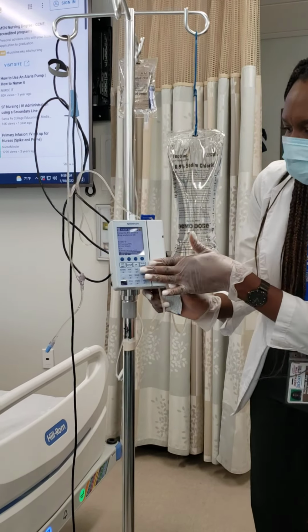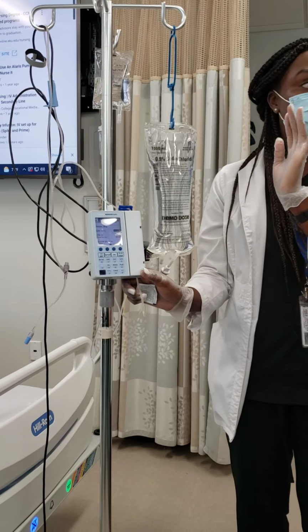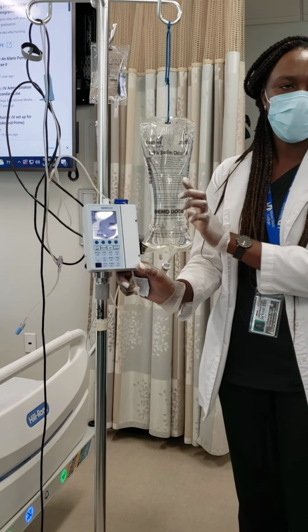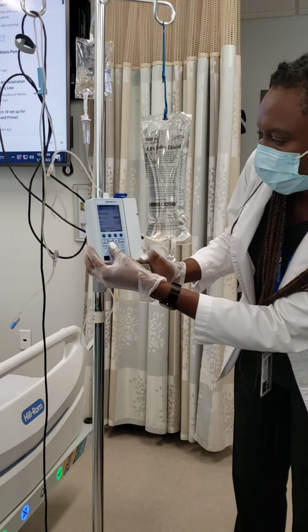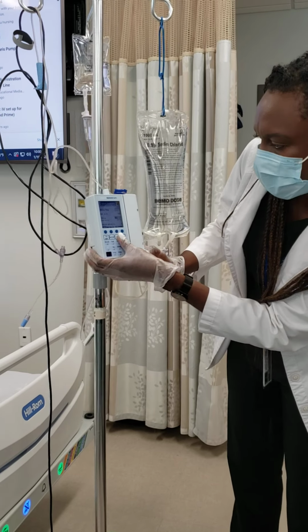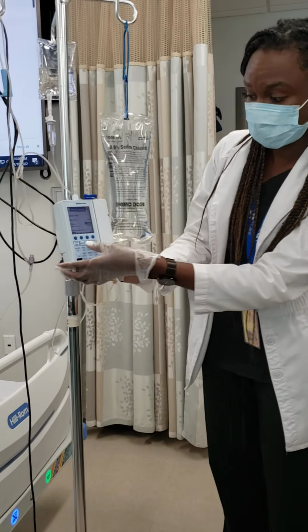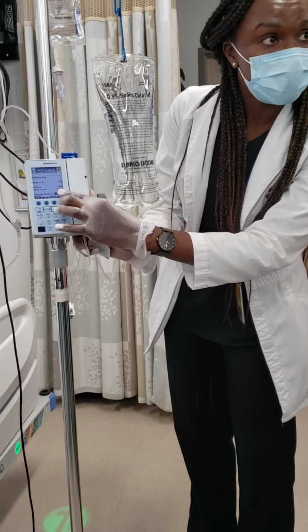Once you do that, you press OK, and it's going to ask you, based on the order in the computer, what your doctor's saying. You want normal saline going at what rate? 100 mL per hour, right? So we'll put that. You manually put in the rate. You press OK, and it already tells you, is it this 1,000 bag? Is it a 1 liter bag? All the information is already there, and it tells you how long it should take to finish.